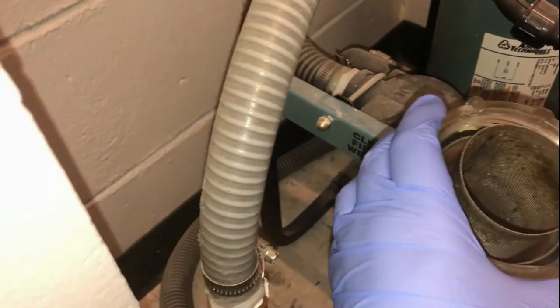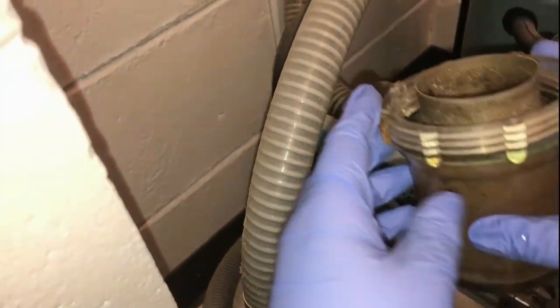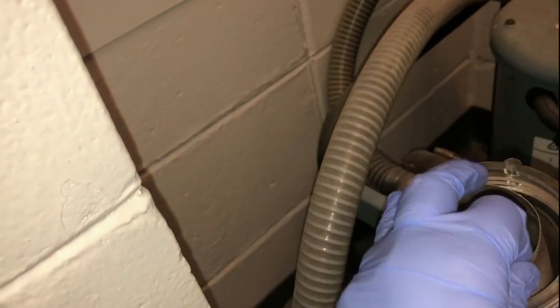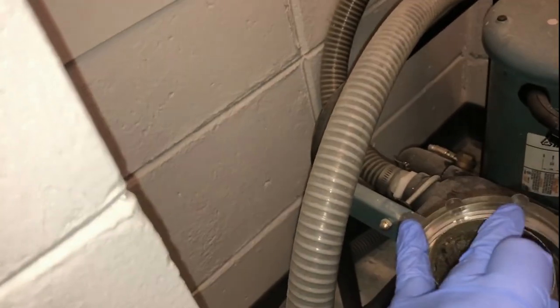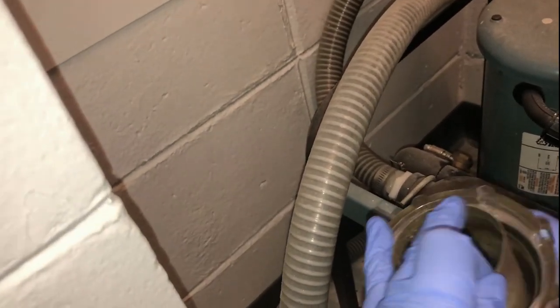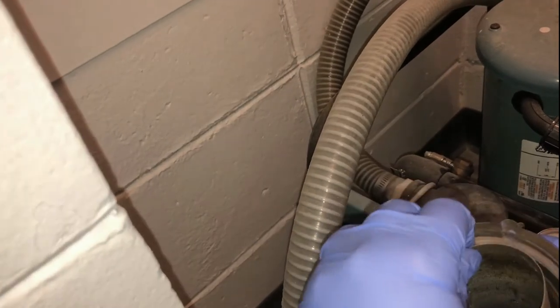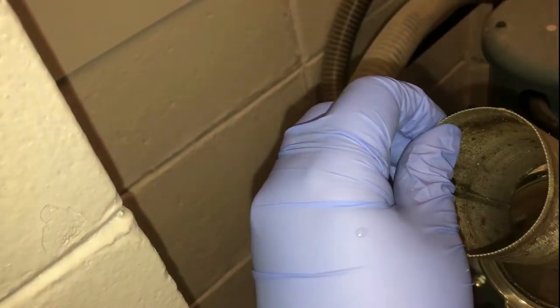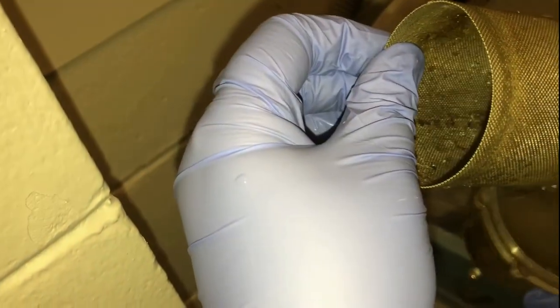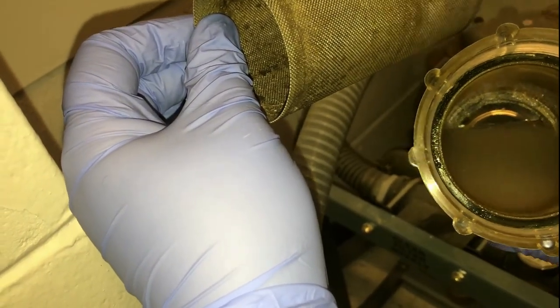This trap is reusable. It's made out of wire mesh. To clean the trap, take it to sterilization and rinse it under running water. Drain the liquid and then place any solid waste in the appropriate waste receptacle.